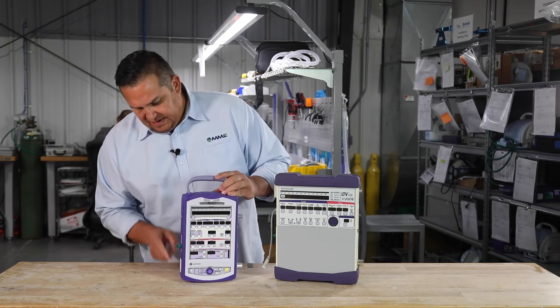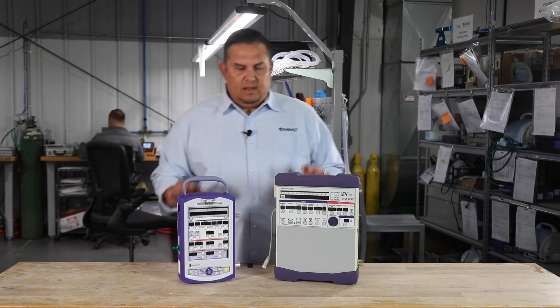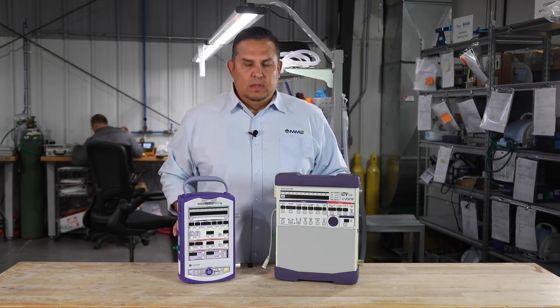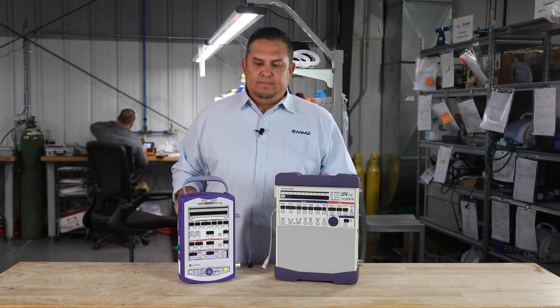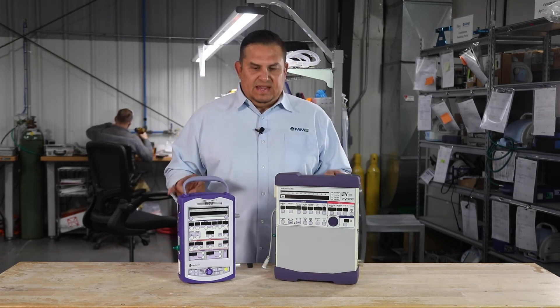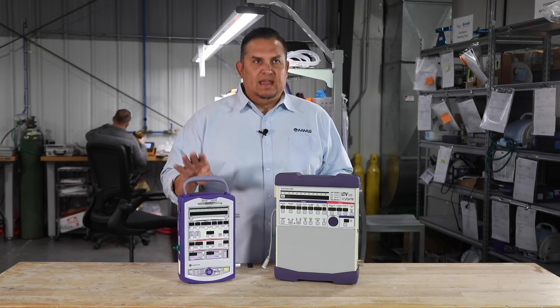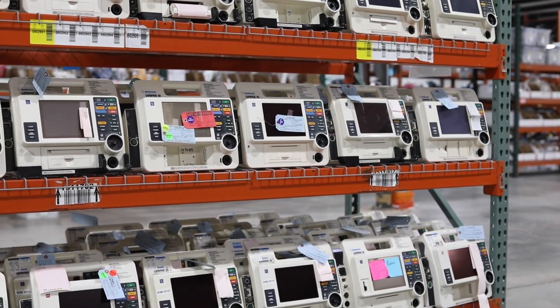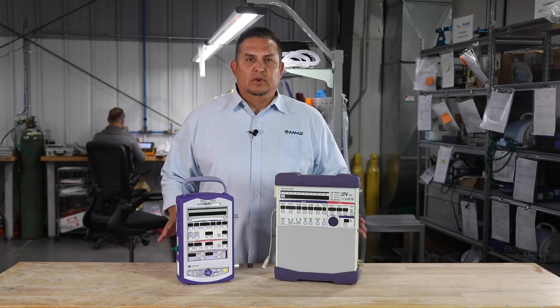Maintaining those two things will save you a lot of headaches, time, and money. Preventive maintenance is done through our sister company Renew Biomedical. The PM schedule for both vents: the LTV is at two years / 10k, and the Revell is at three years / 15k. The second PM schedule is at six years / 30k for both models. By following the preventive maintenance schedule outlined by the manufacturer's recommendations, this should prolong the life of your unit.